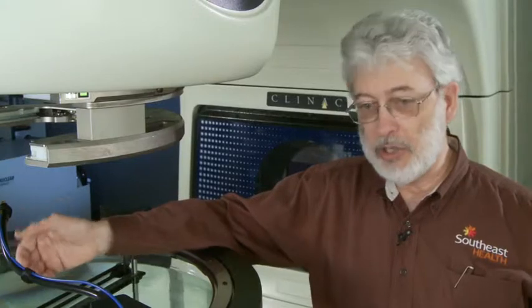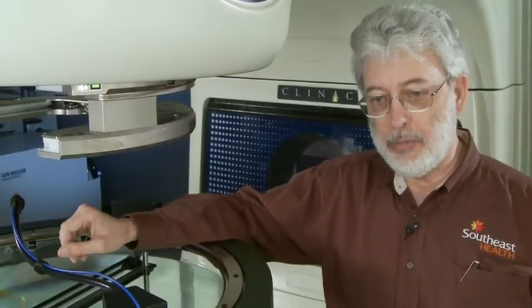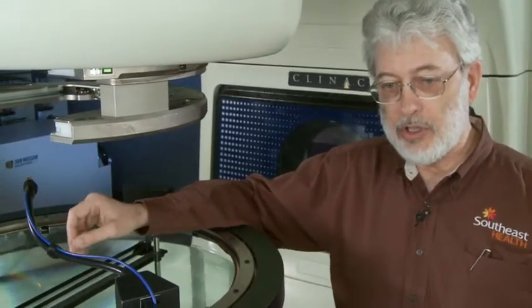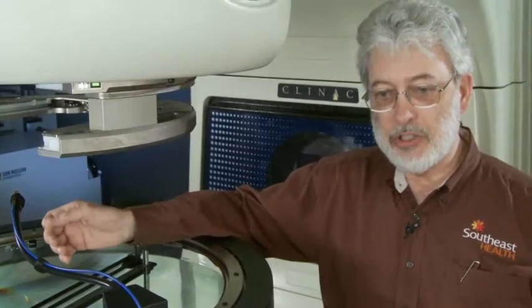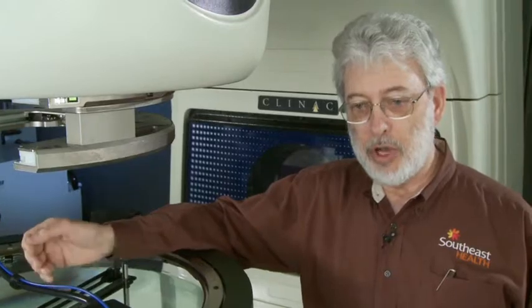Now I do that also at depth to make sure that I'm aligned over the whole range of depths that I'm going to measure. But if you have a beam that's not vertical you can use the built-in ray trace function and that finds the trajectory of the center of the beam and follows the track of that beam throughout your scanning.